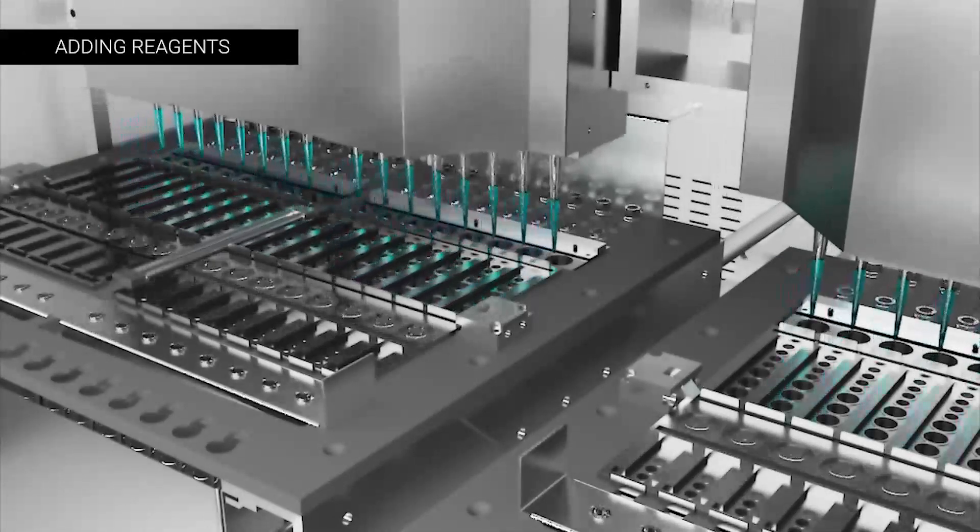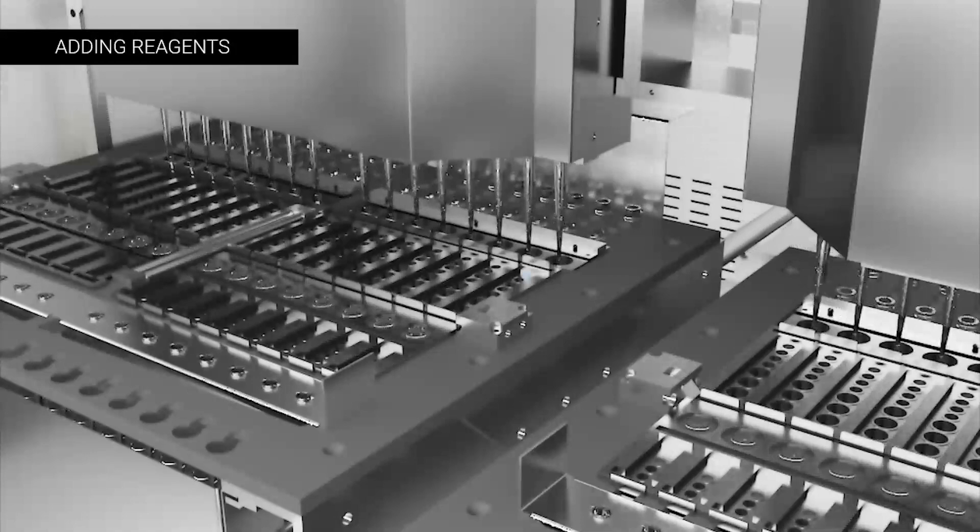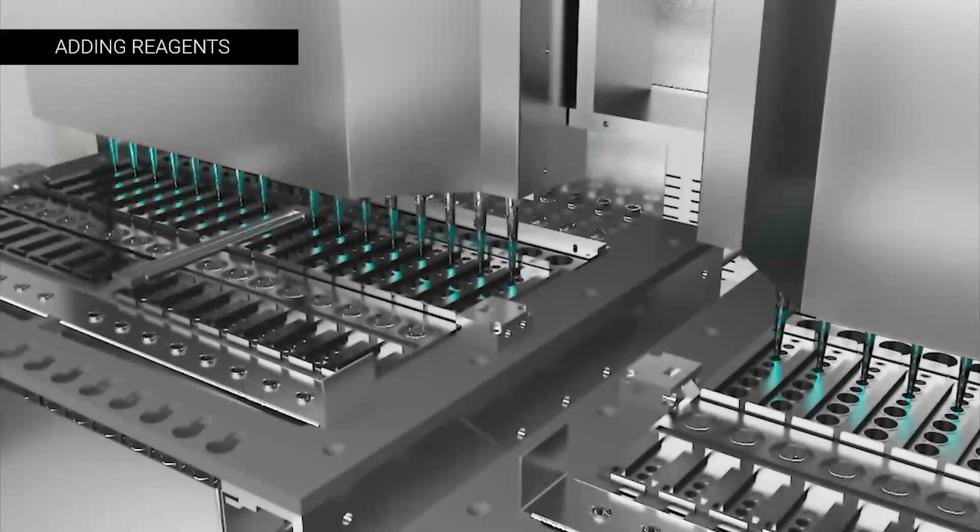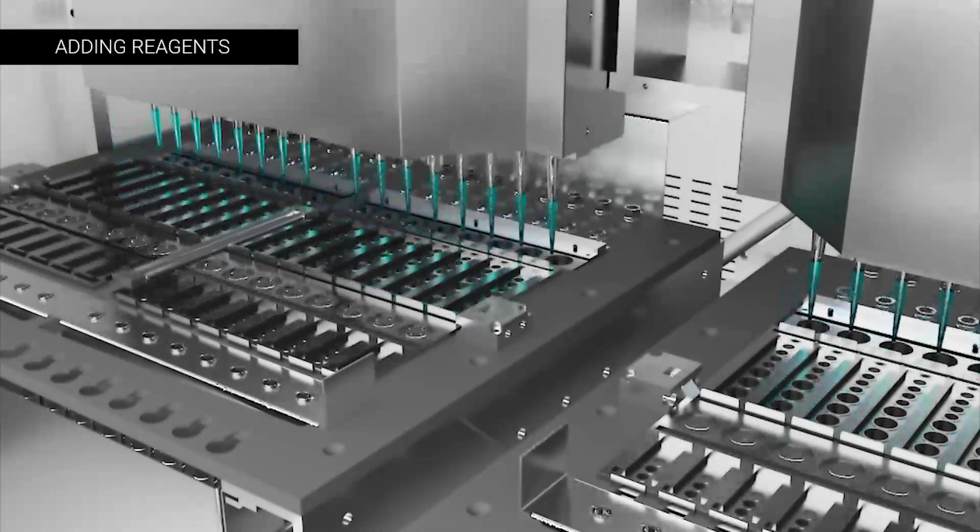CompactXL performs extraction of DNA and RNA from the virus as well as sample-to-PCR and analysis of the virus at an early stage.